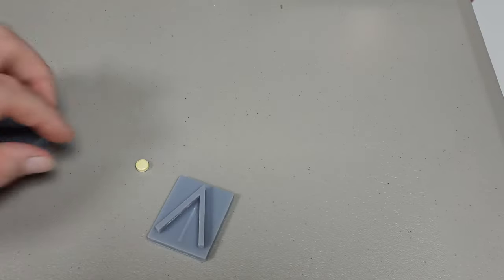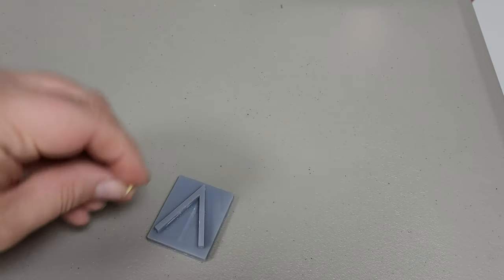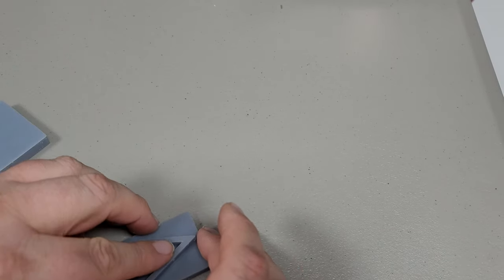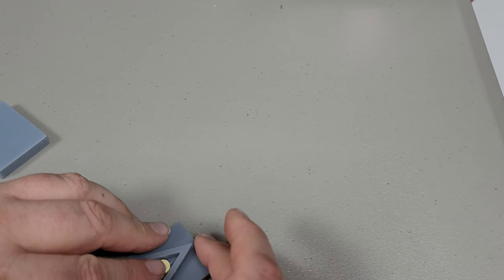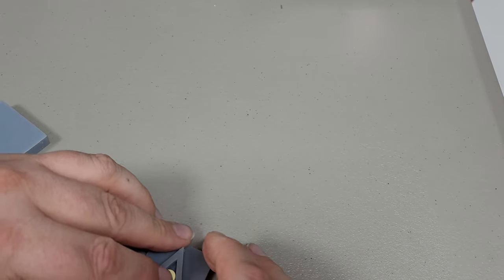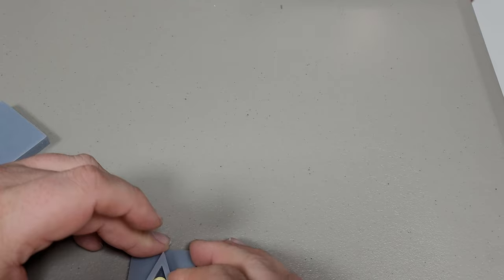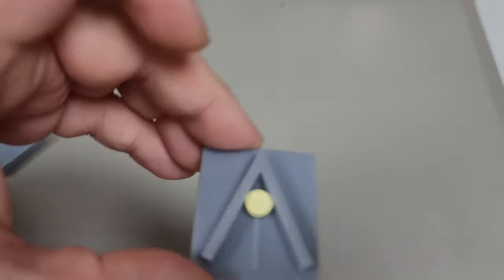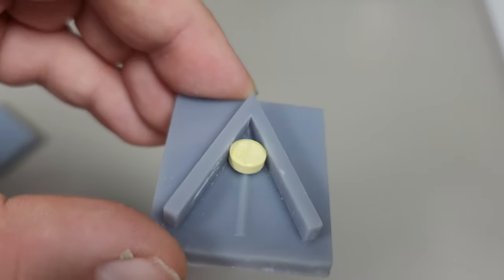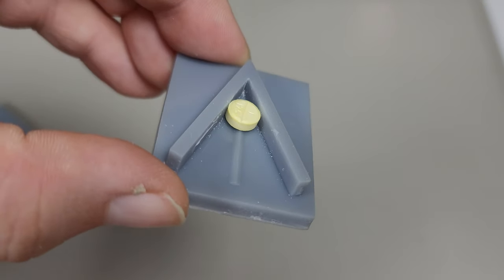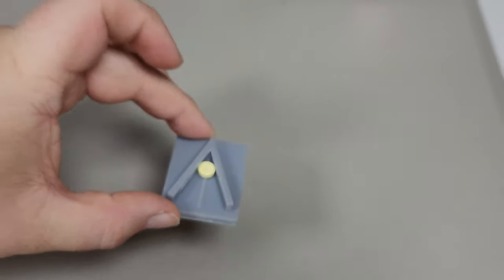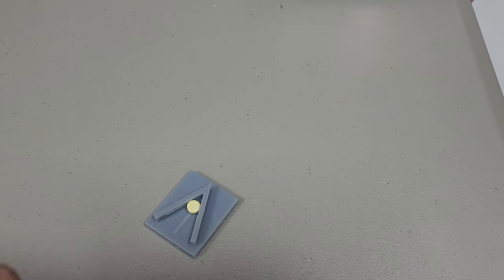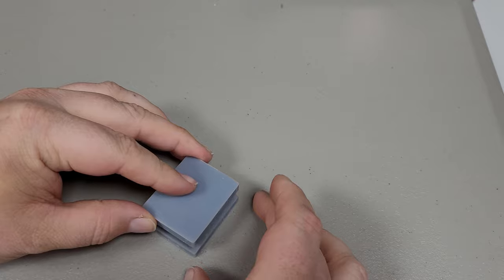So, if I take a pill, like this pill, I put it in there. Now, one of the downsides is, you've got to have that score facing up, and you want to have it as closely aligned with the ridge as possible. So I've got to try to come up with a way to simplify that. Alright, now I'm going to just take this top part here, I'll show you what's under there later, in a sec. Set it on.